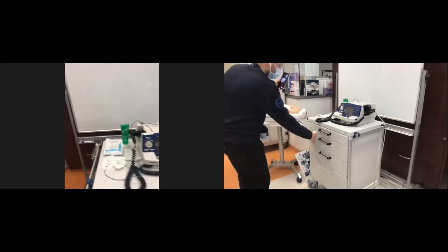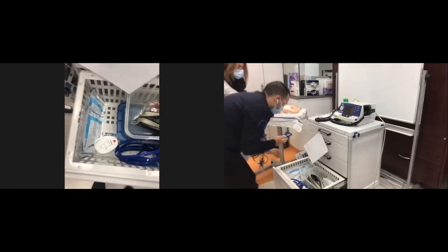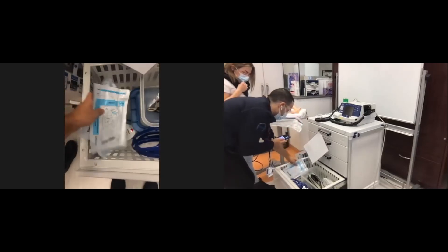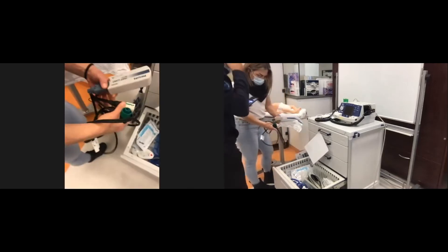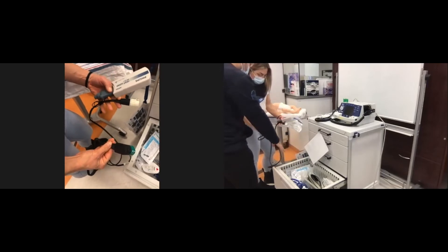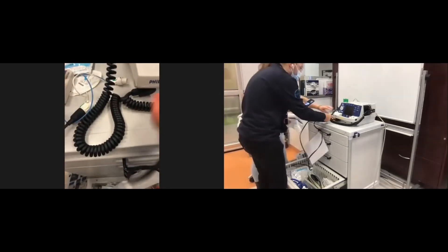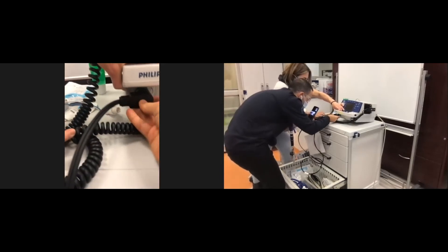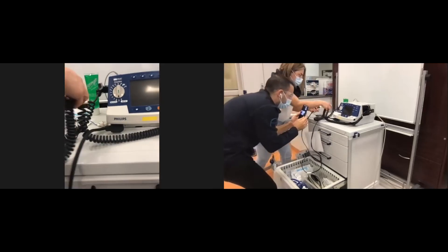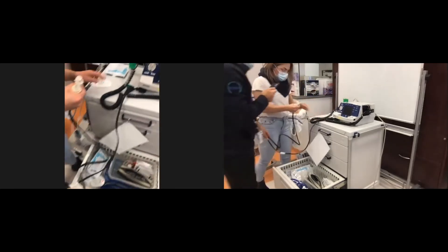On a practical standpoint, within the last drawer of the unit, you will find the pads. They connect to a specific cable, which is always stored with the pads. This cable has a green extension that connects here — you twist it and green goes to green. If you want to use the pads instead of the paddles, you just push here, then connect the cable to the pads.